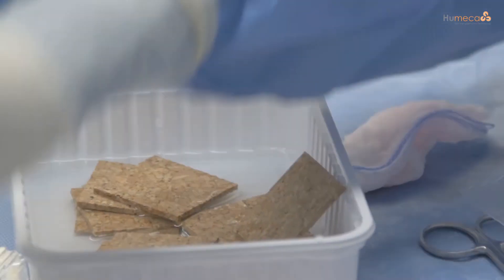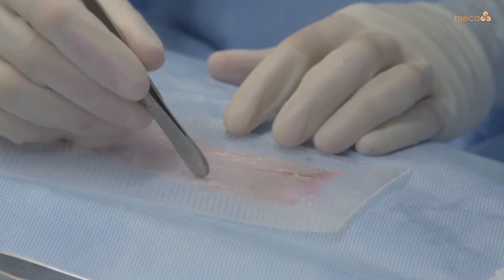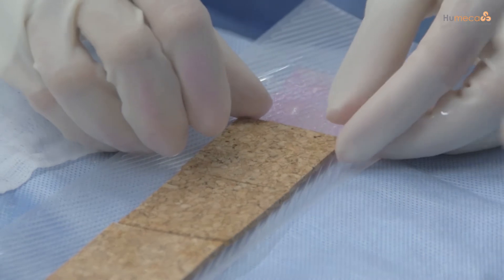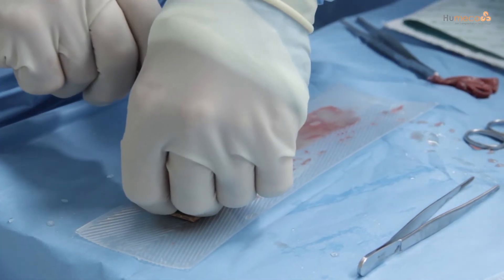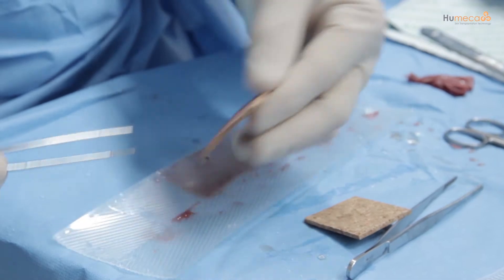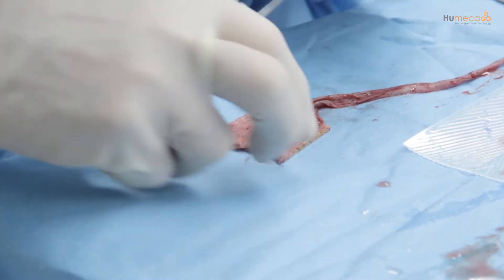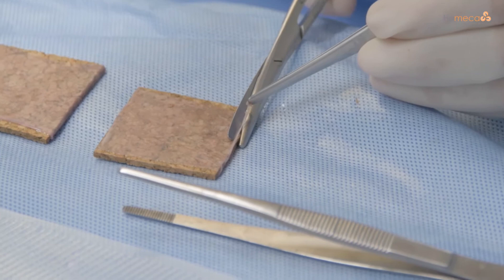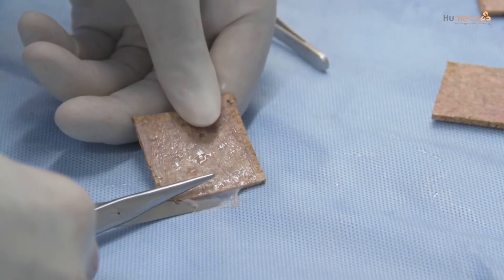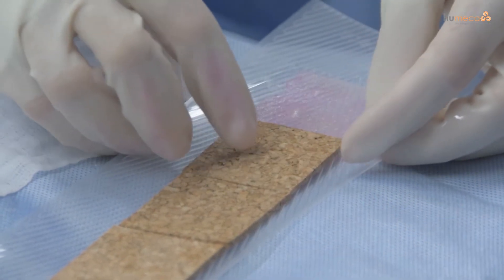Make sure the cork plate is wet but prevent the pre-folded gauze from getting wet. Spread the graft completely on a sterile surface with the epidermal side down, then place the cork plate on the dermal side of the graft. Cut the graft to the exact size of the cork plate. After cutting, gently turn over the cork plate so the skin is in place and flat. An alternative is to place the graft dermal side down directly on the cork plate. If needed, trim the graft to the exact size of the cork plate; otherwise excess skin will not be part of the cutting process and there will be a lack of skin islands in that specific row.